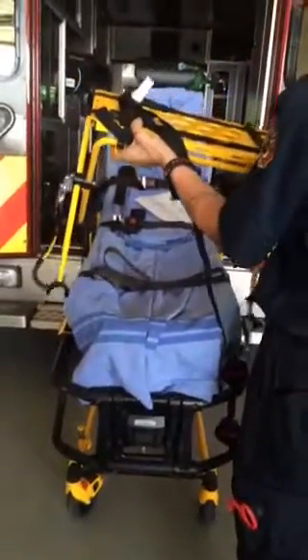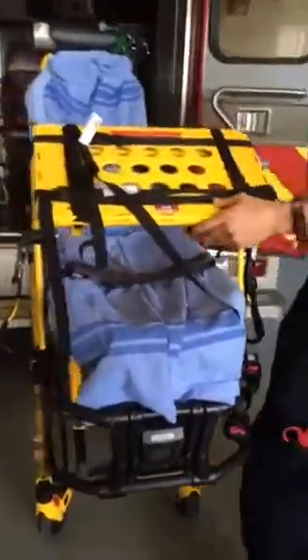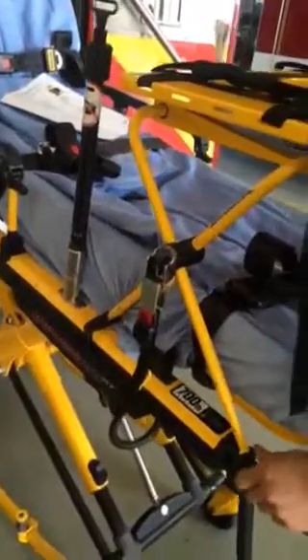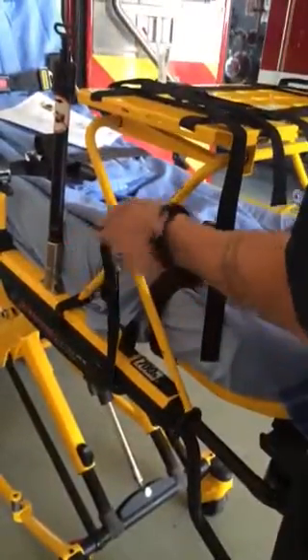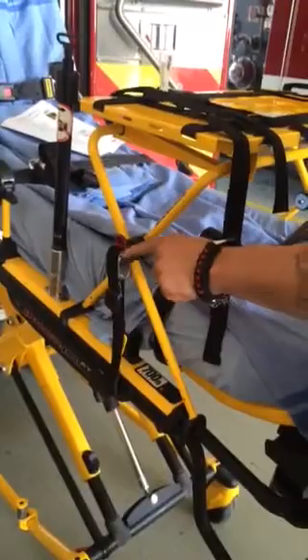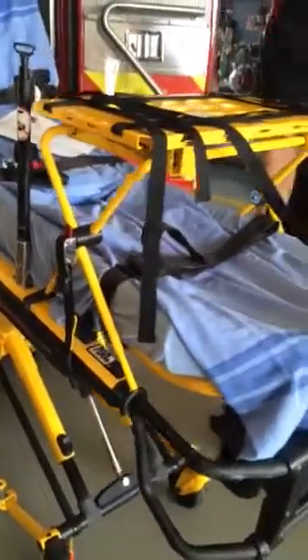Put the back on first — just like that. You kind of have to squeeze the mattress in to get the legs to go on. Put the round side all the way up, right against where the handle meets the frame. On each side you have two latching clamps. Clamp it all the way so it locks in, so that little indent is in its spot. Then come over to the other side and do the same thing.